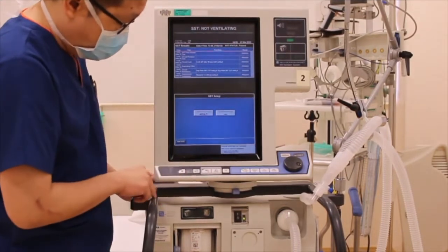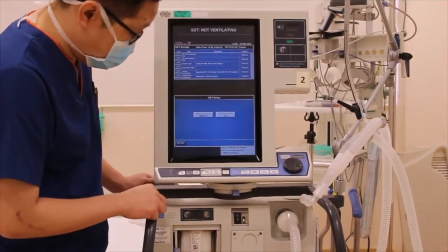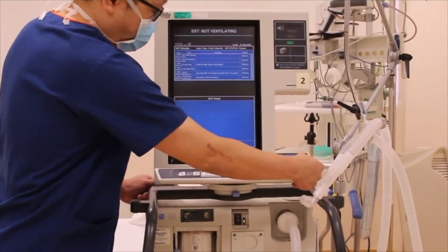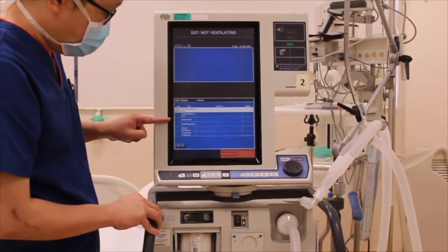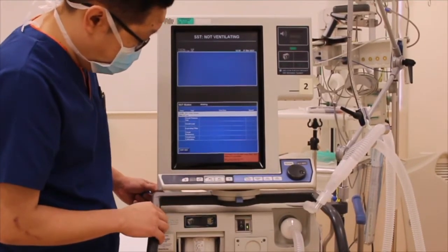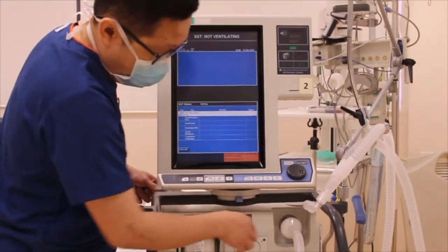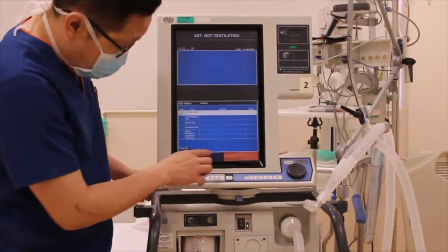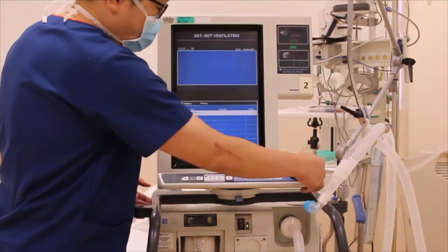Please note that in the bottom right-hand corner, there are instructions that will guide you step-by-step for the procedures that need to be done. Once we have selected the options, press accept, and it will show you the SST status with the various steps that will be done. It is asking us to connect the circuit with the inspiratory filter and humidification system, which we have already done using the bacterial filter. Press accept, and it asks us to now block the Y-connector by reconnecting the blue cap to the Y-connector before you press accept.